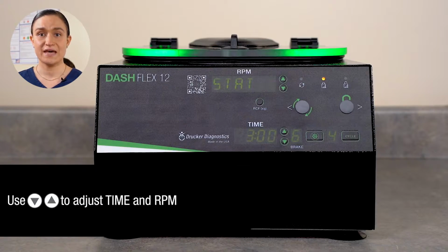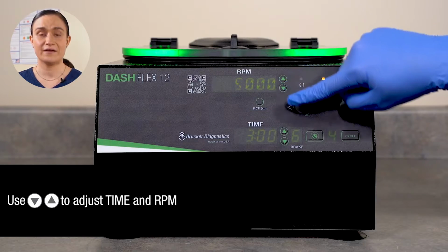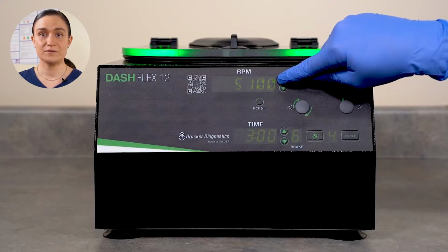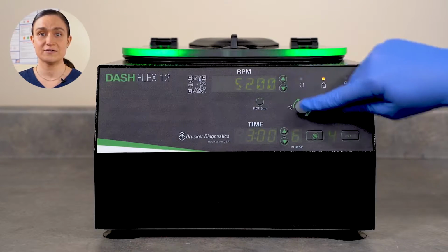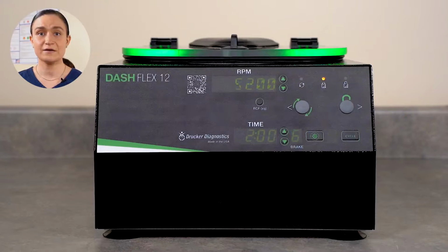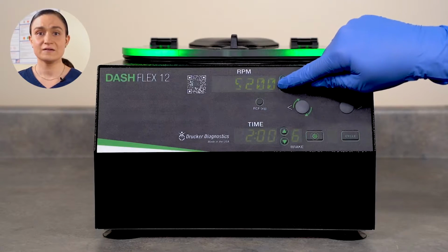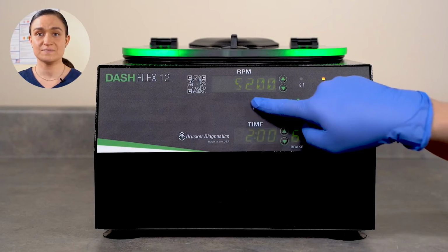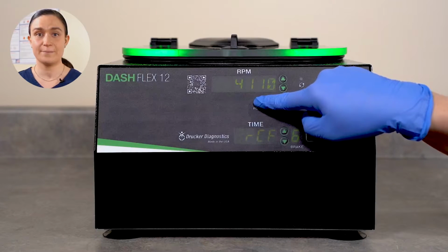Adjust your RPM and time values using the up and down arrow buttons next to each screen. The RPM and time shown will adjust as you increase or decrease with each button press. Remember, if you accidentally go over your desired value, you can always use the down arrow button to adjust. You can press the RCF XG button to adjust speed in G-force instead of RPM.